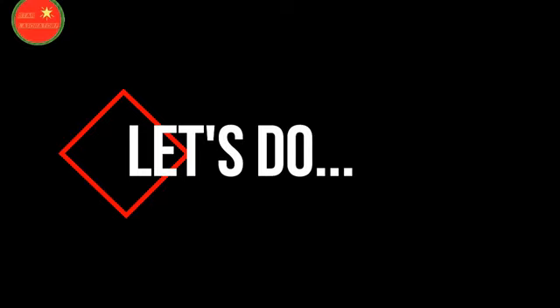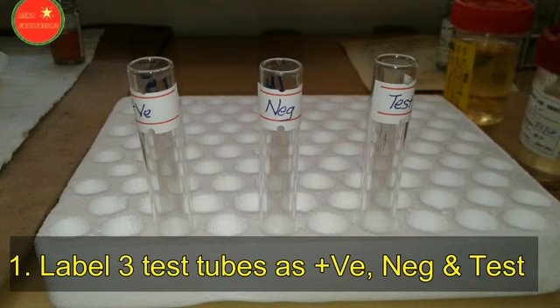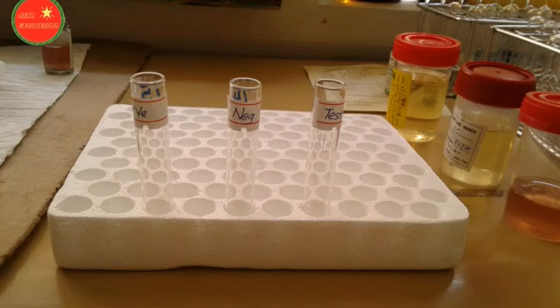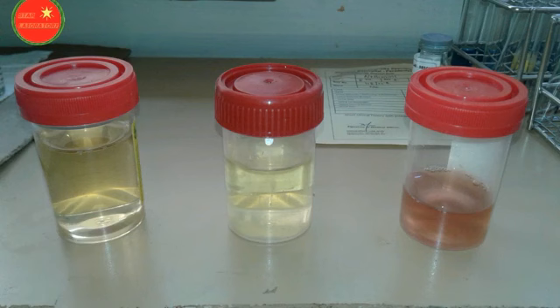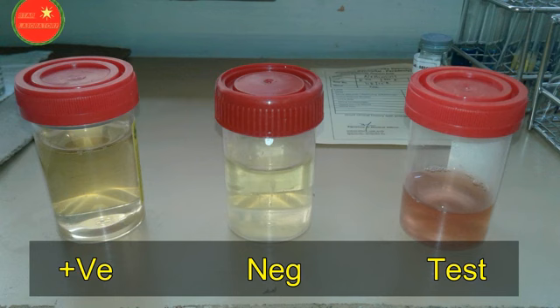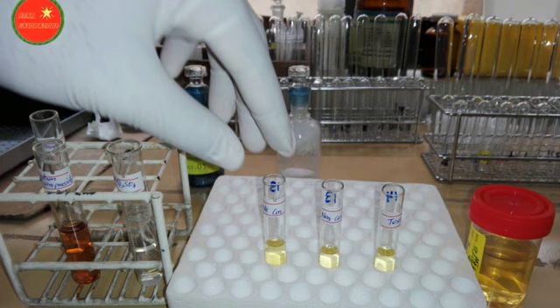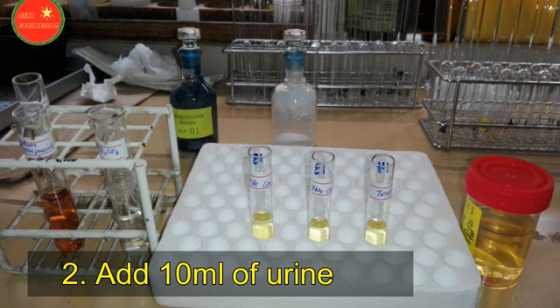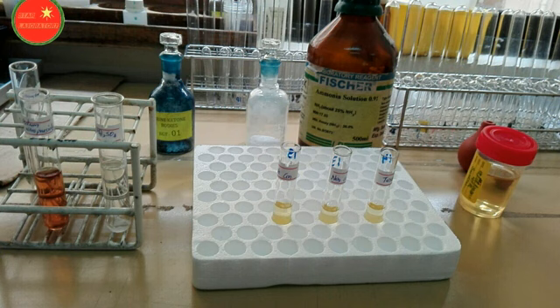For the method, first take three test tubes — one for positive control, one for negative control, and one for the test — and do proper labeling as shown. Mix the sample well. Using the 10 ml pipette, add 10 ml of urine sample into each related test tube: positive to positive, negative to negative, and test to test.